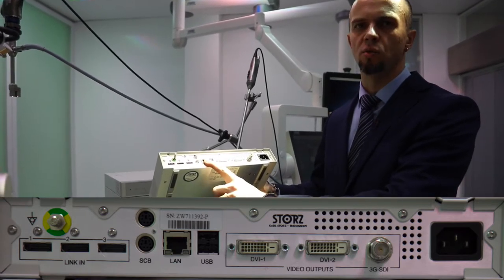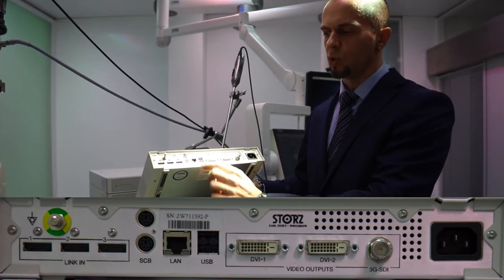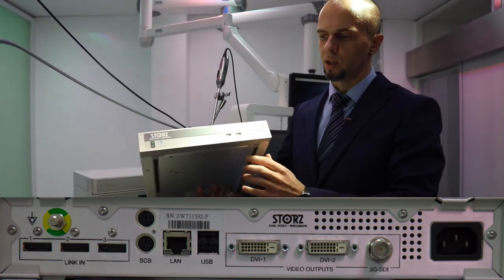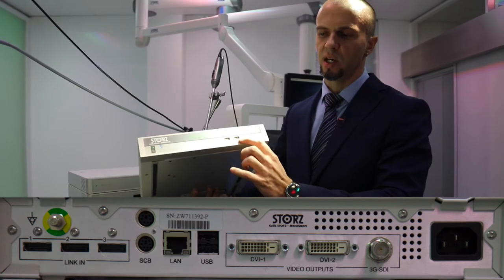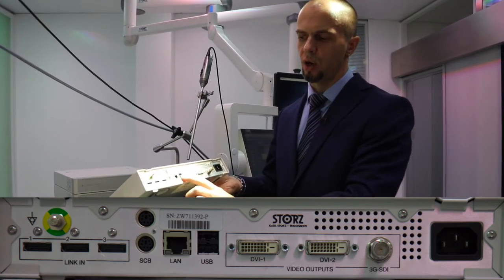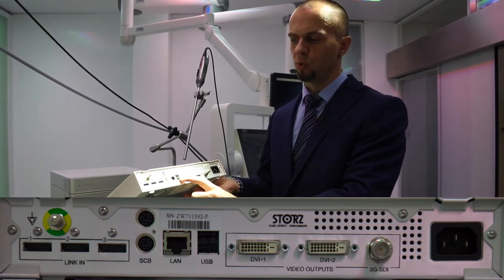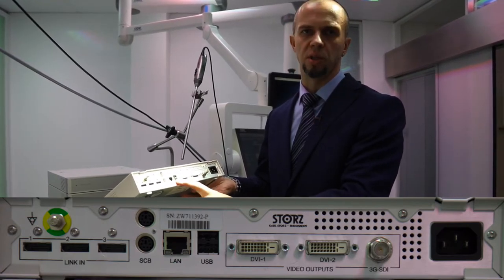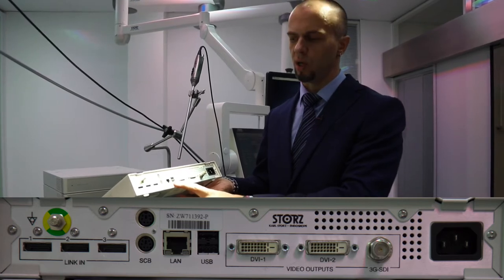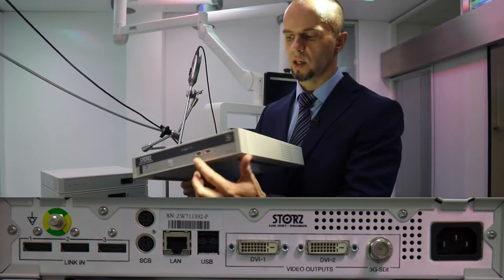К больничной сети LAN подключать нельзя — это неправильно. Два USB-разъёма на задней панели — это тот же самый USB-концентратор, что и спереди. Они полностью равнозначны. Чаще всего сюда подключается наша USB-клавиатура. Также можно поставить USB-накопитель, если не хотите втыкать его спереди.